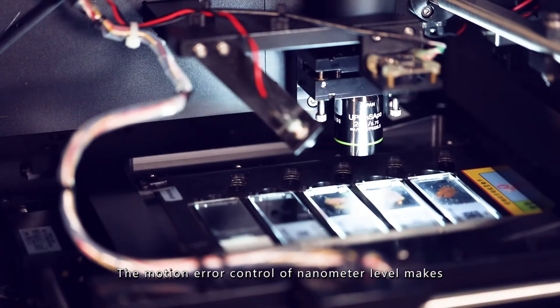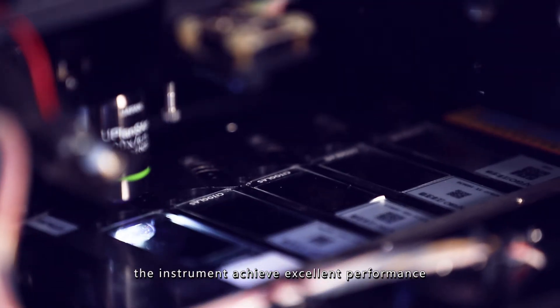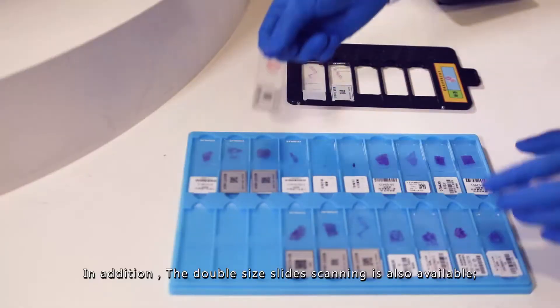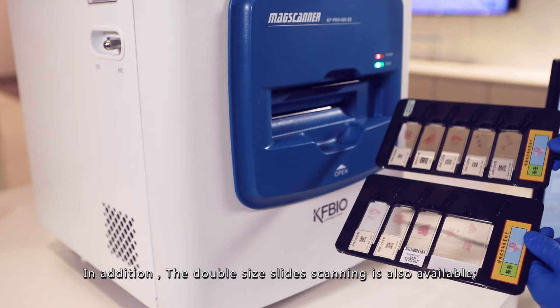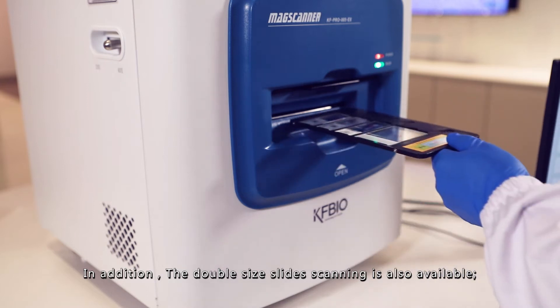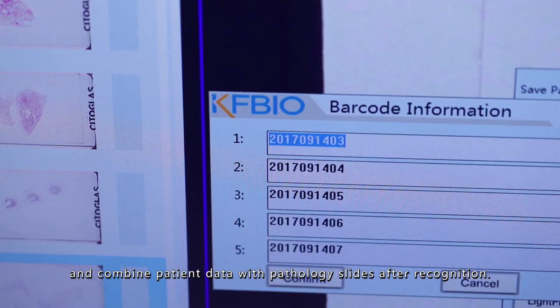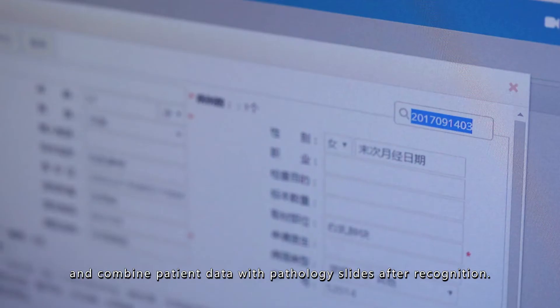The motion error control of nanometer level makes the instrument achieve excellent performance in presenting image details. In addition, the double-sized slides scanning is also available. The instrument is able to recognize slides labeled automatically and combine patient data with pathology slides after recognition.